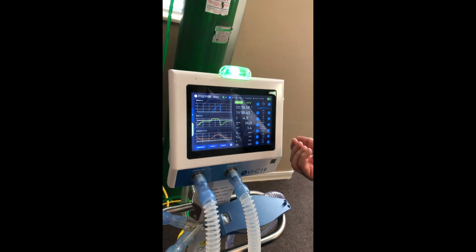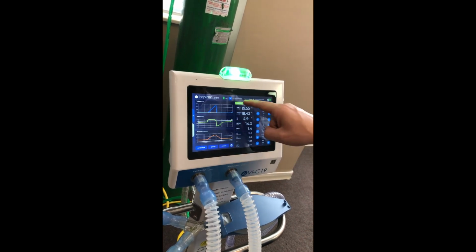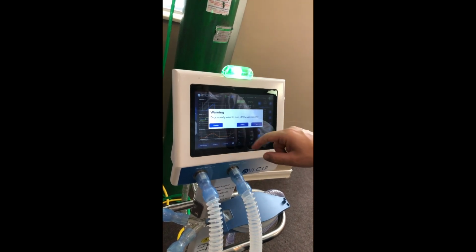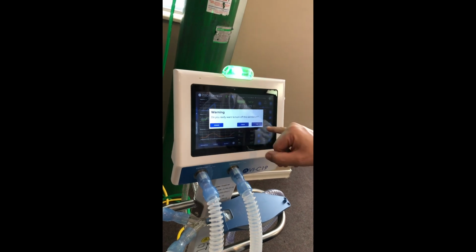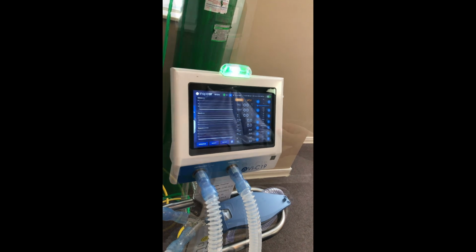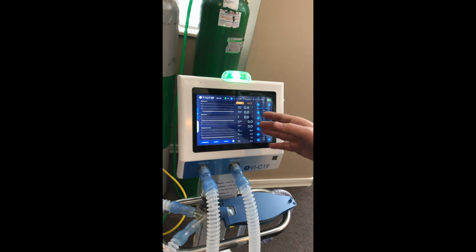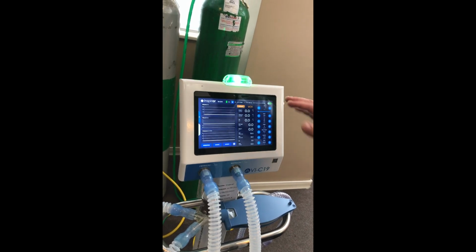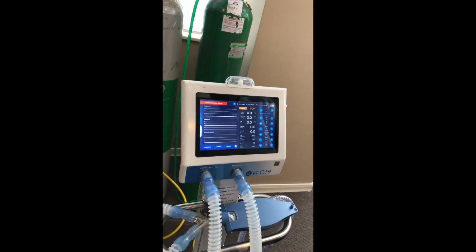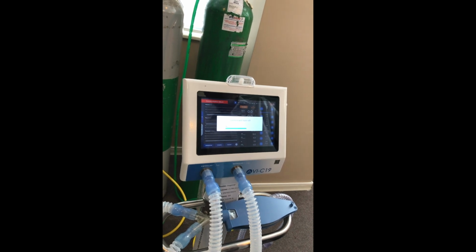Okay. To stop the ventilation when it's finished, you need to press here. And do you really want to turn off the ventilation? You can stand by, as I said, or you can hit OK. Now the ventilation is finished. To turn off the ventilator, it is important to first stop the ventilation, as I did, and then you can turn off. Just hit the off button, and the equipment will start the process of shutting down.